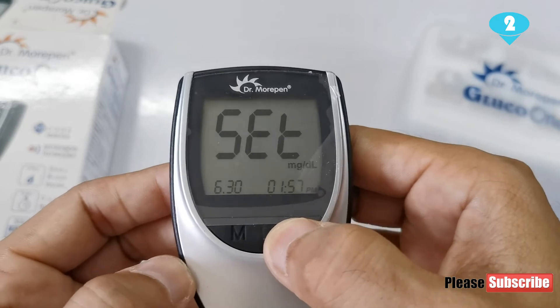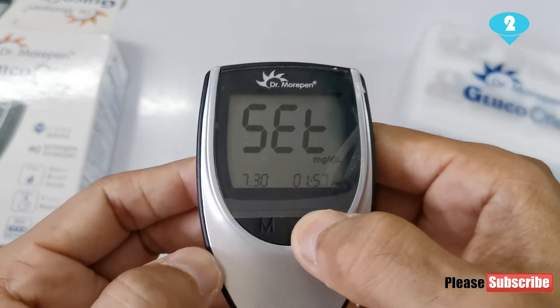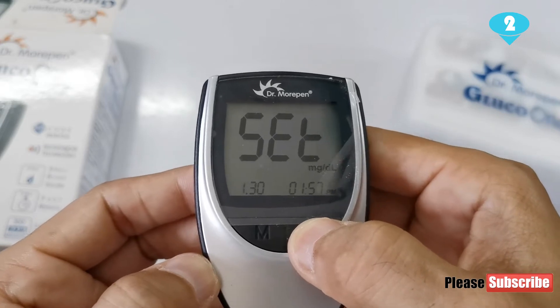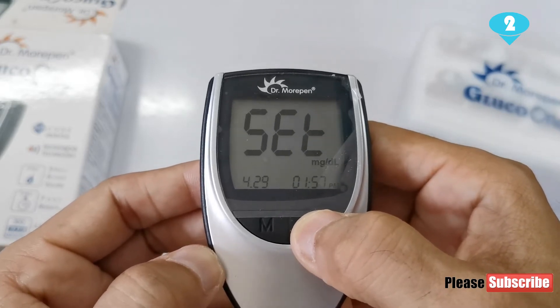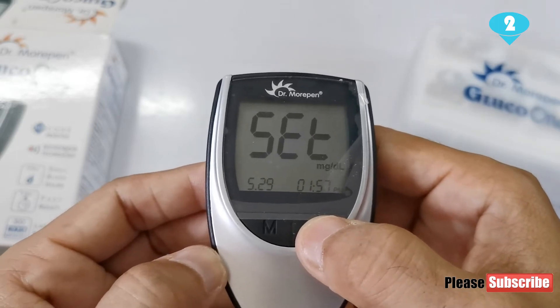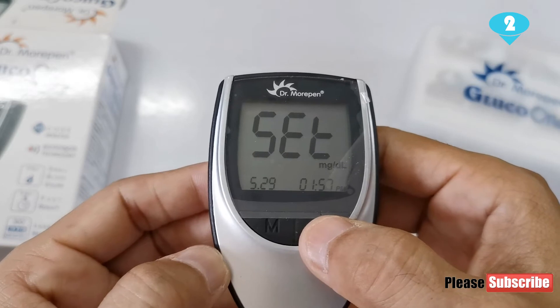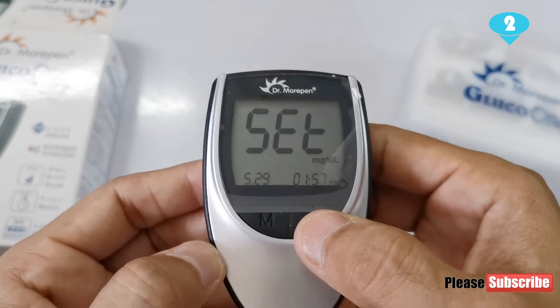Now if I want to change that I will go ahead and hit the C button. The moment I hit the C button it will change to the sixth month, and then I can keep hitting the C button and adjust this. It has come back to the fifth month now. You'll notice that the date which was 31st has changed to 29th.